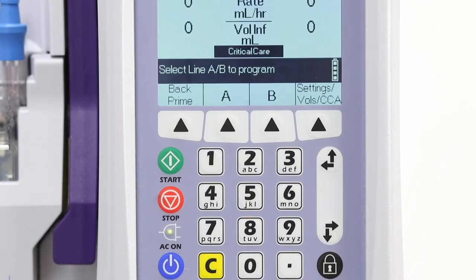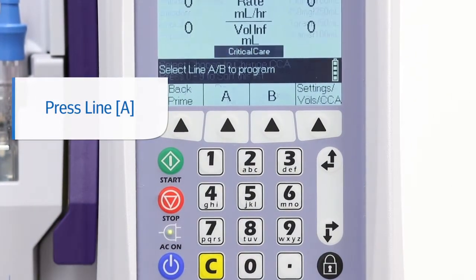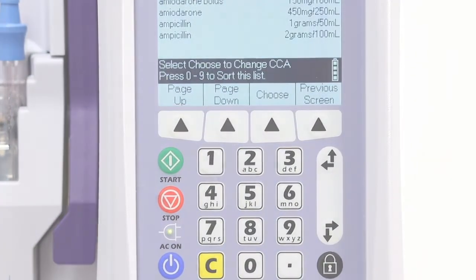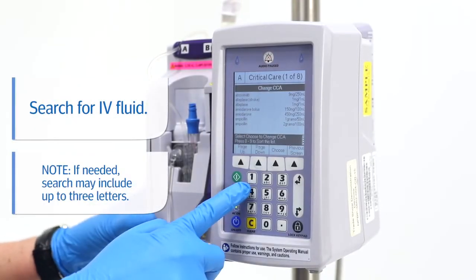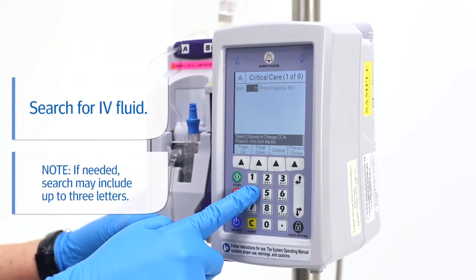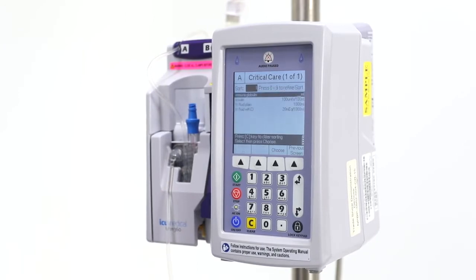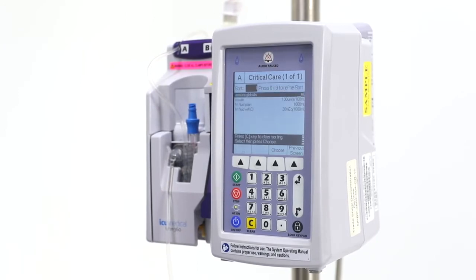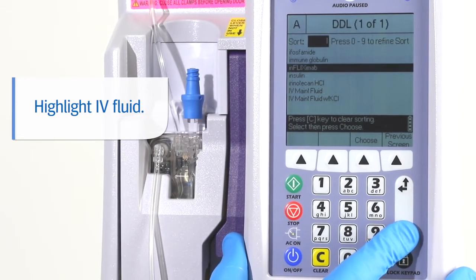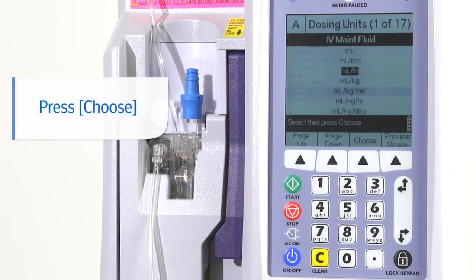Once the clinical care area populates the main delivery screen, press line A. Using the alphanumeric keypad, press the four key three times to find all medications starting with the letter I. Next, press the select down arrow to highlight IV fluid, then press choose.